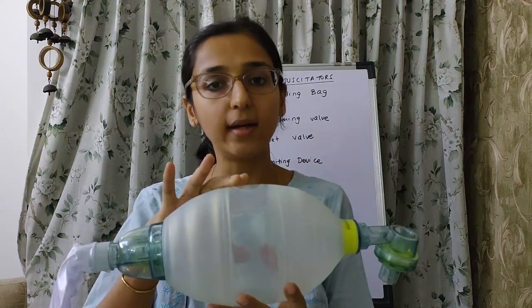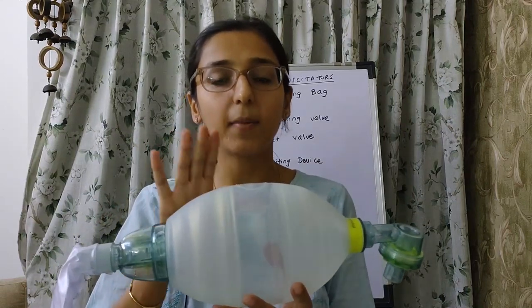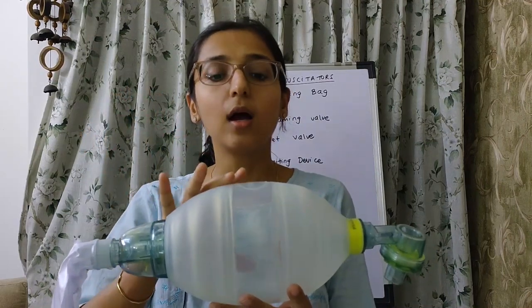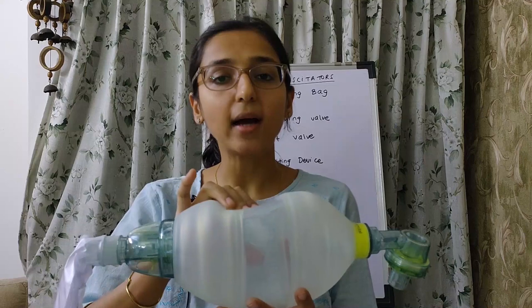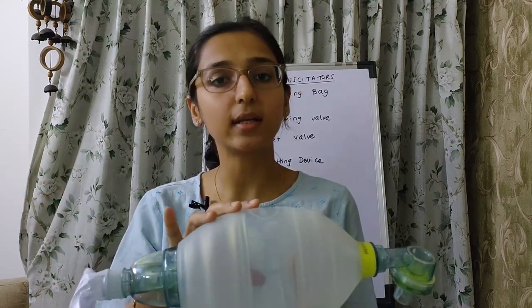The respiratory rate you can provide by this bag will be determined by how fast the bag can expand. If the bag takes more time to expand, the respiratory rate will be quite less. But if the bag expands quickly, you can give a higher respiratory rate.